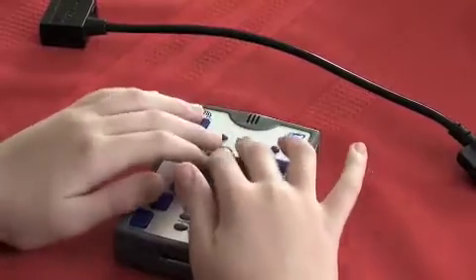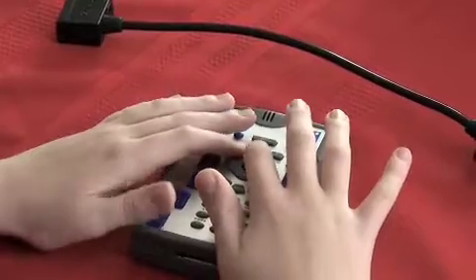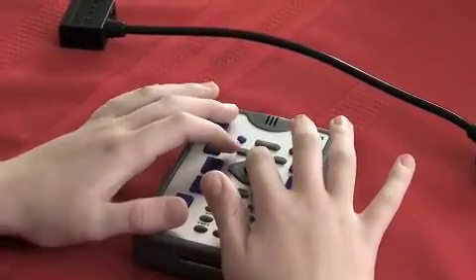Below Status and Help is a diamond-shaped keypad. The top key moves you up through a menu or a document or wherever you're at.